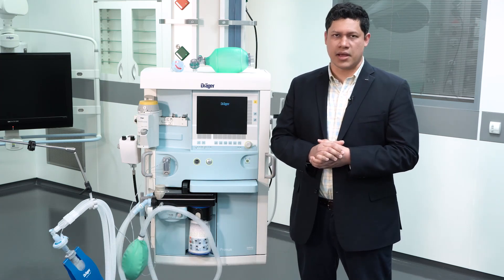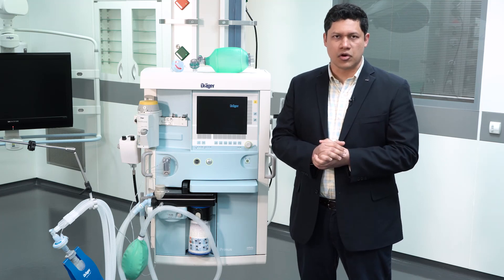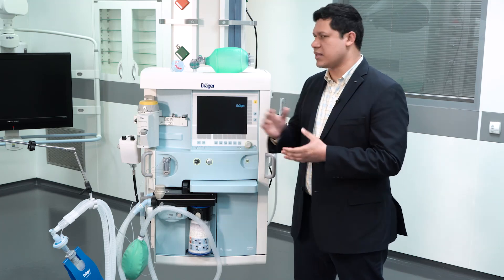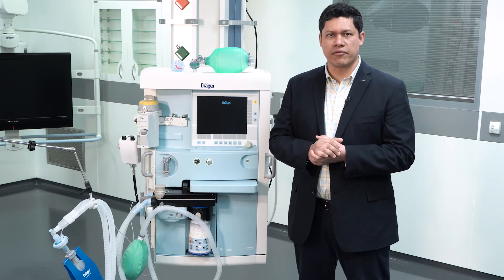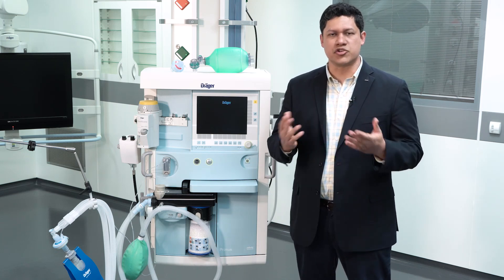We will provide additional video content going into details on how to perform the self-test and the leakage test. Additionally, we will cover the differences between the ventilation modes.